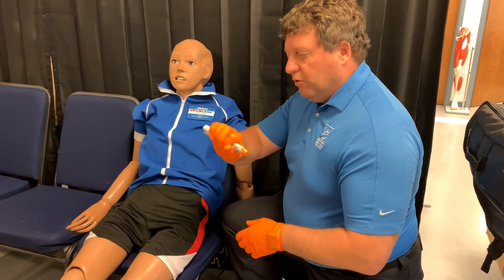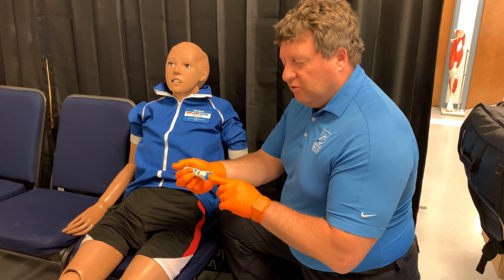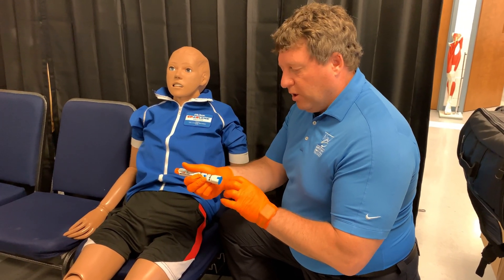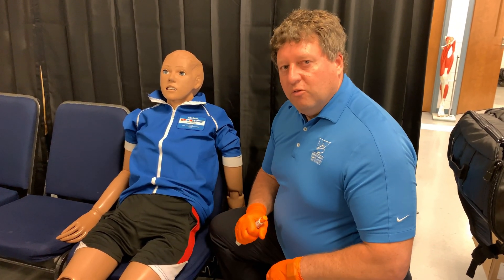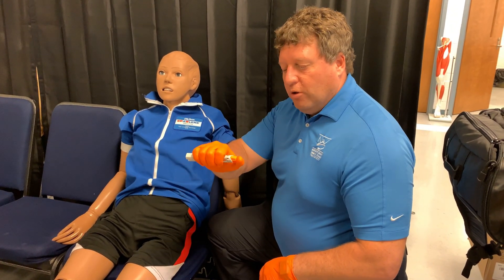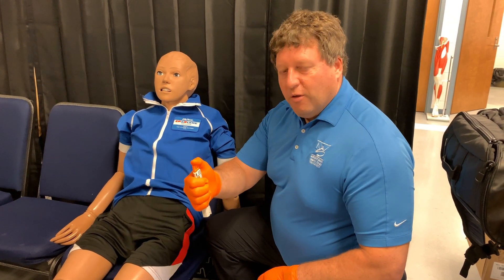We always want to hold this in the middle and never on one end or the other. This is the safety — some people call it a safety cap. But since we're dealing with a needle, I don't like to think of it as a cap, because a lot of times you take the cap off and think that's where the needle is, then try to inject it the wrong way and nothing happens. That's why you always hold it in the middle — if you hold it wrong and inject the wrong way, it goes in your thumb.